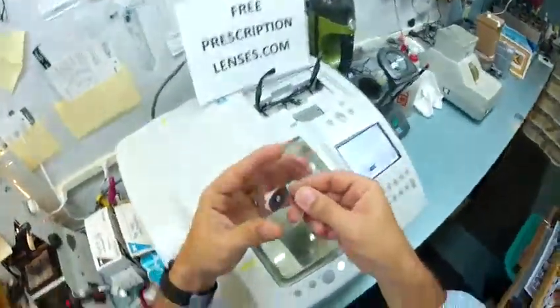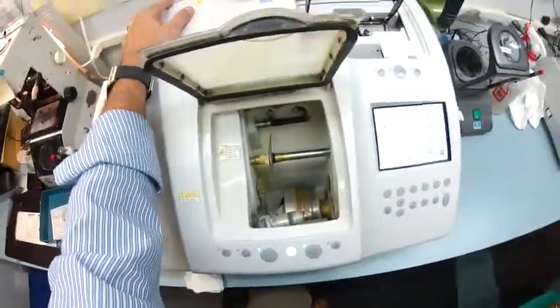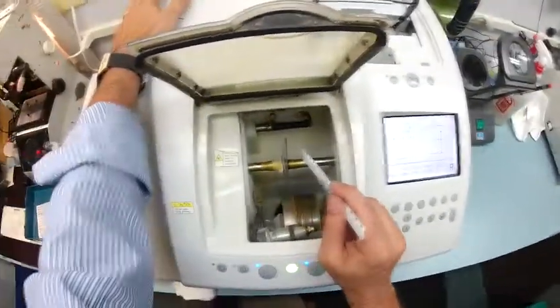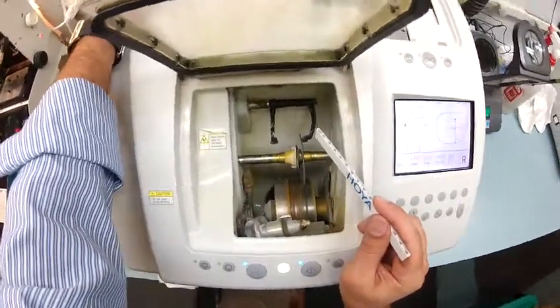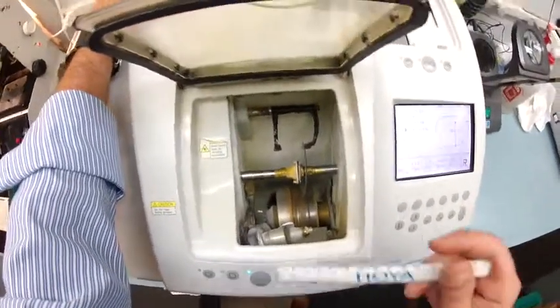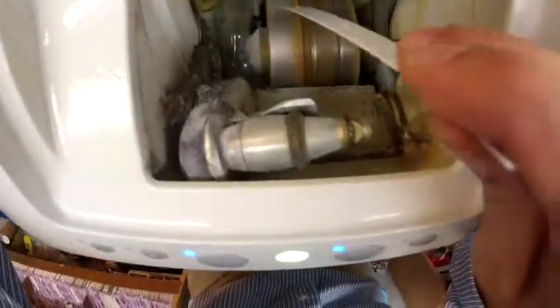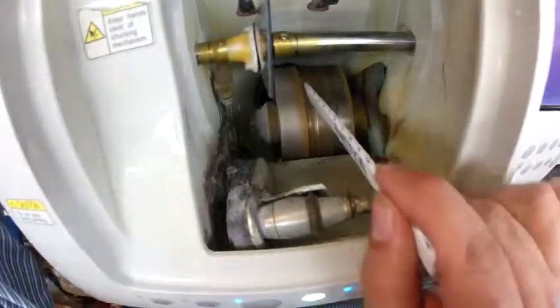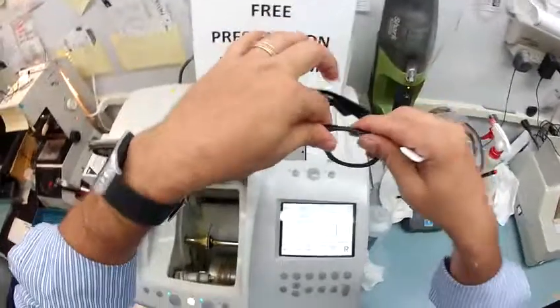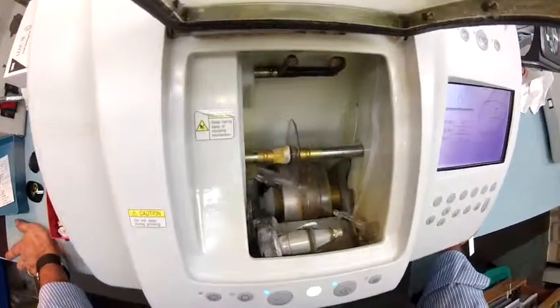That is your left lens; this is your right lens. I'm going to put it into the chuck — or as I like to say, the 'charles,' because I don't know it well enough to call it chuck. The first thing that's going to happen is these calipers are going to come down and trace the shape of your right lens onto the back surface to make sure it's large enough to cut out. It's tracing the concave side first — the back surface closest to your eyelashes — then it's going to move over and trace the convex side, the front surface which sits away from the face. The actual cutting wheel is down here on the bottom — it's heavy grit sandpaper. Essentially it's going to grind away your lens material, and the wheel in the center of that channel is what's going to cut the bevel onto the lens so it stays inside the bevel of the frame. I'll close the door as this is cutting, but for now I just want you to see your bifocal transition as it touches down onto the cutting wheel.